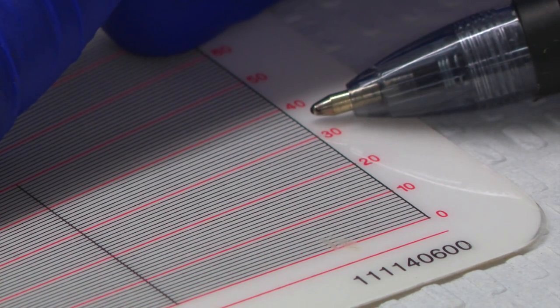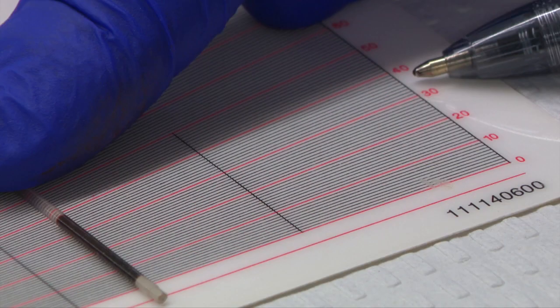Follow this line to the corresponding value. This is the hematocrit percentage. We read this value to the nearest 0.5 percent.